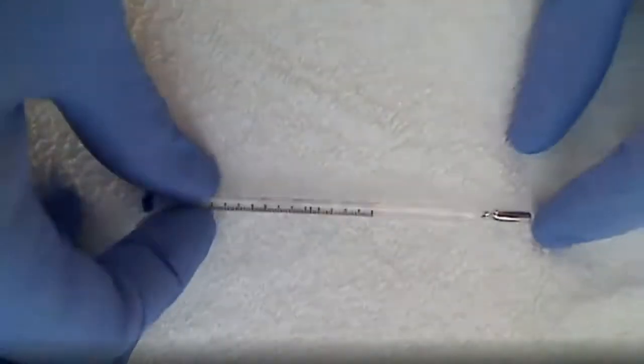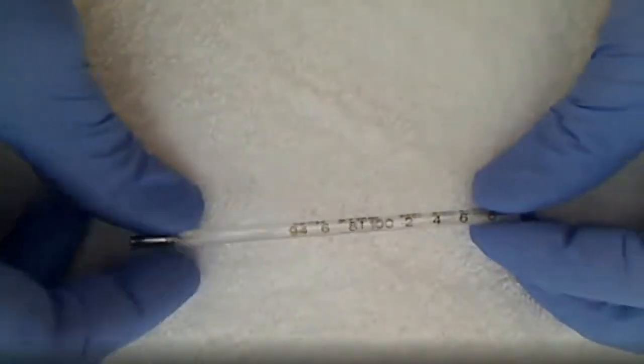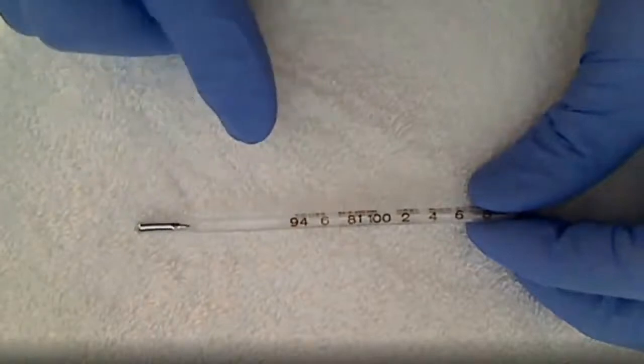Here is a mercury thermometer. Let me get it in the camera here real good. Let me go this way so y'all can read the numbers. Get it in focus. All right, you can see.